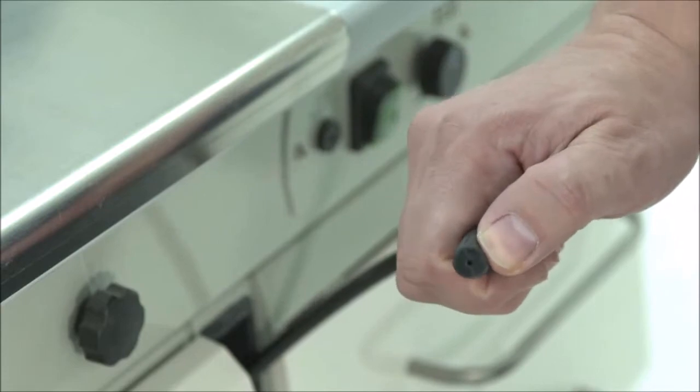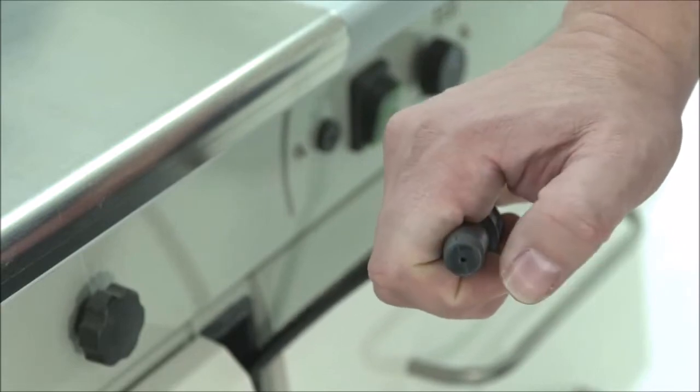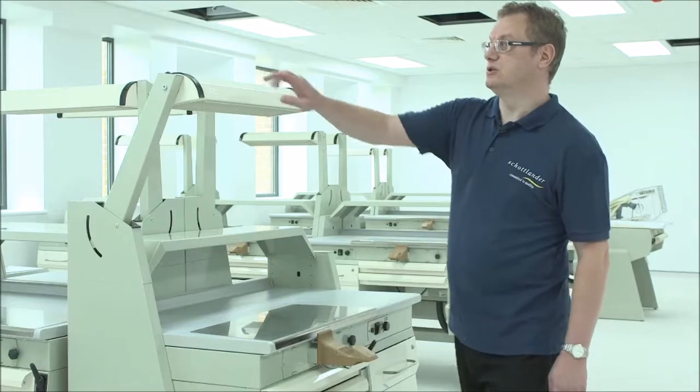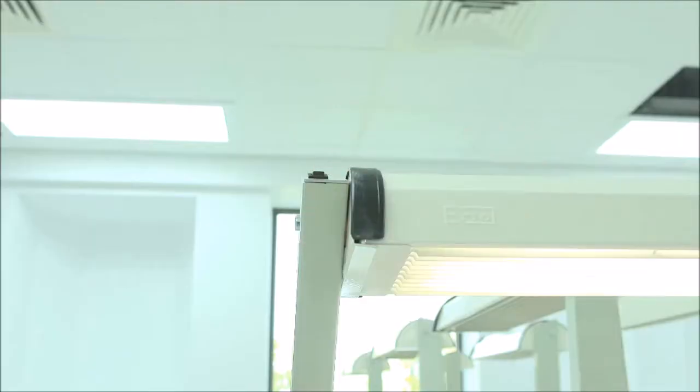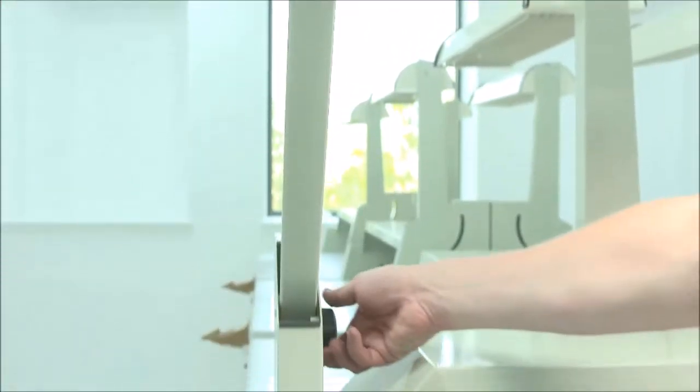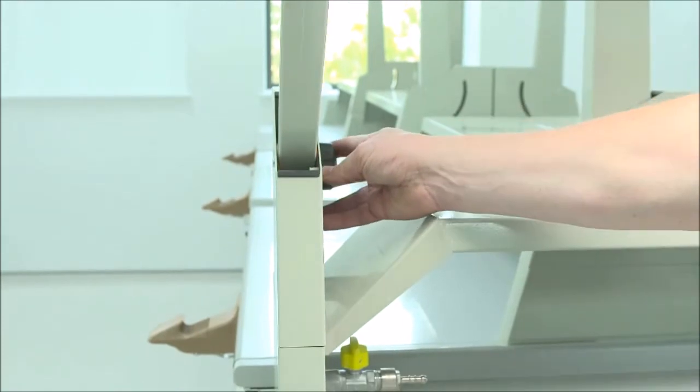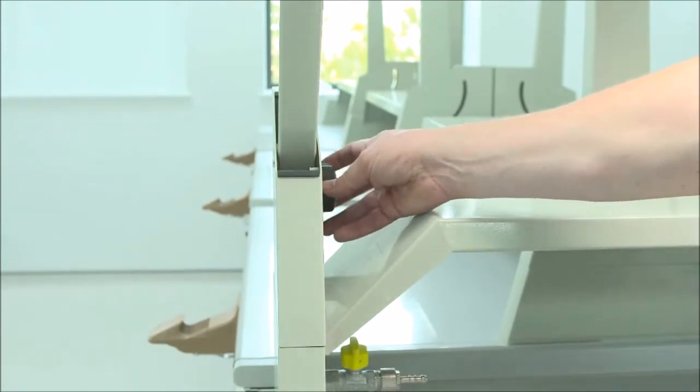To operate the air line bring forward, deflect to release the air, and release to stop. The light switch is on the top and to adjust the lamp, release the black knob, adjust to the preferred position and re-tighten.